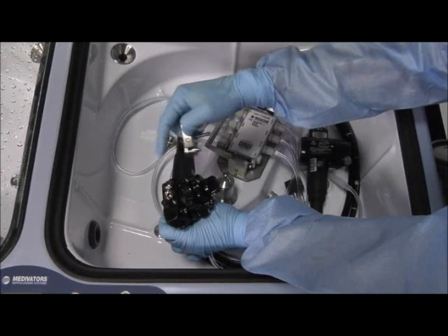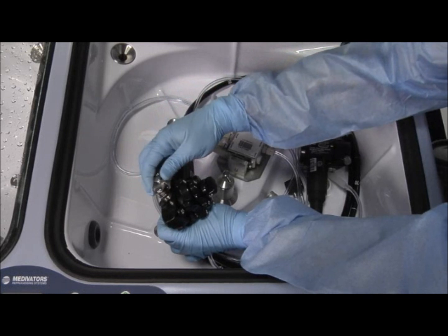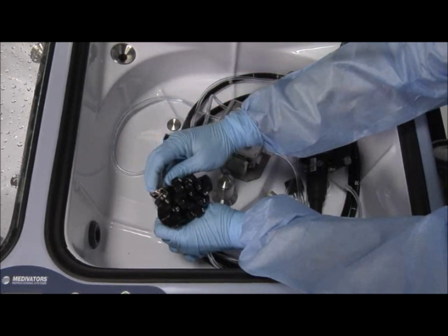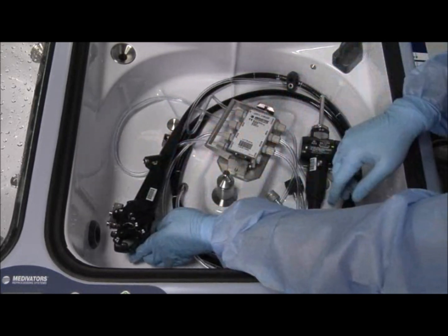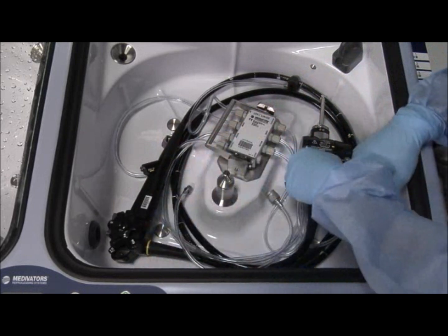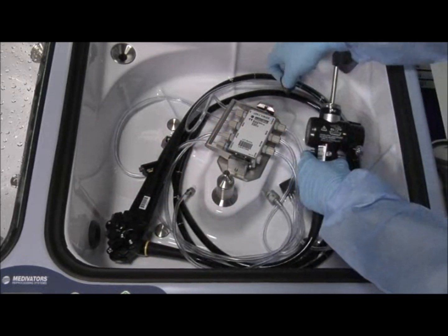Every scope channel connection should have a hookup connection. This allows for monitoring of channel blockage, leakage, and connectivity. Also, every connector should be attached to the scope.